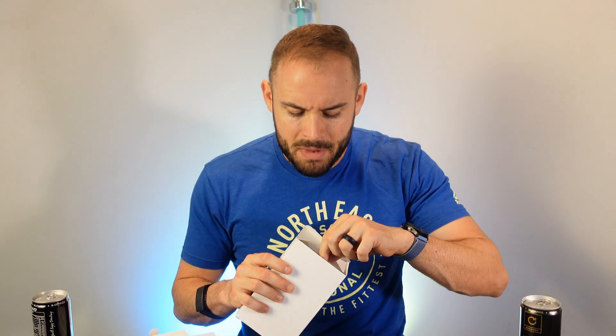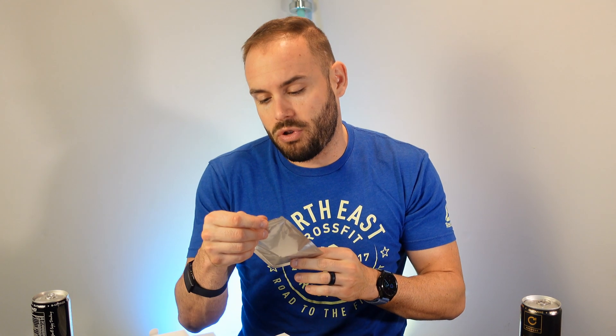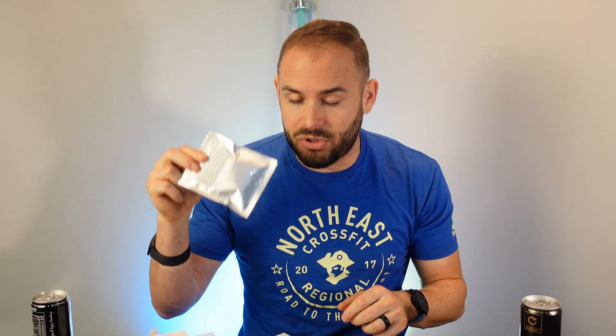So you pop that open — these are all going to be within little sleeves. It has a USB for your computer to get that all set up, and you can also download it online. Then it's going to have a lot of your monitoring electrodes — 3M stuff. It's also going to have a chest strap. They recommend that you use electrodes, but either way it can work. And of course it has its instruction manual as well.